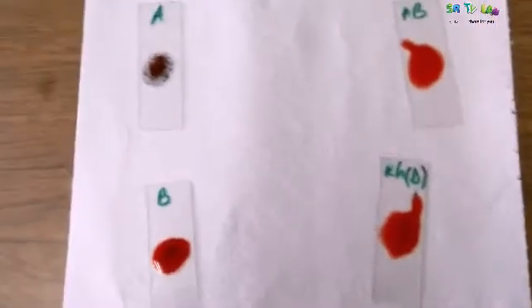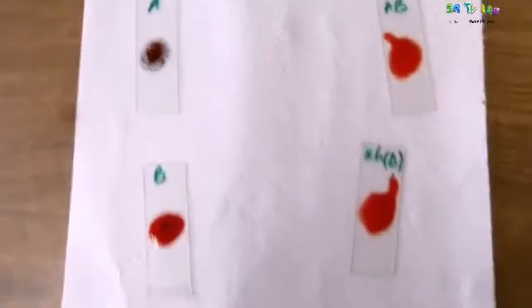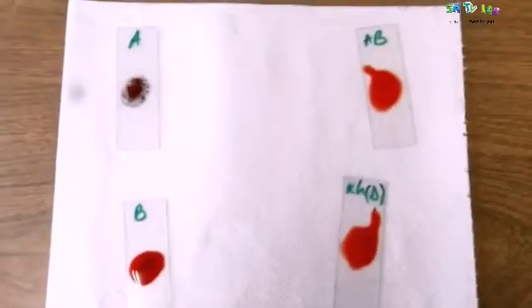What if someone has blood group O? There will be no agglutination at A, at B, and at AB. If it is positive, there will be agglutination at D. But if someone has blood group O negative rhesus, or rhesus negative, there will be no agglutination at A, AB, and no agglutination at D as well.